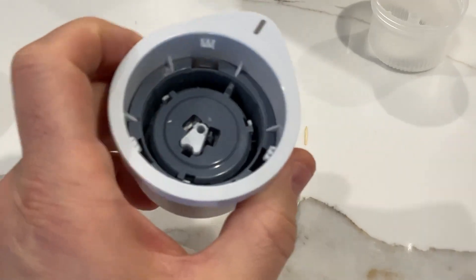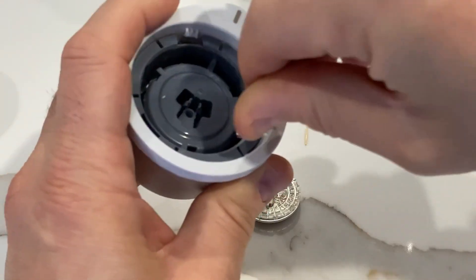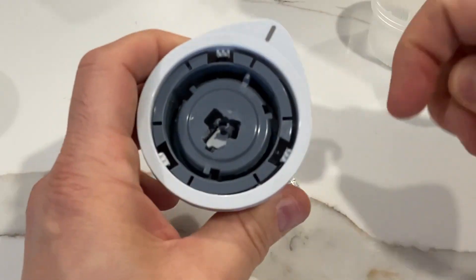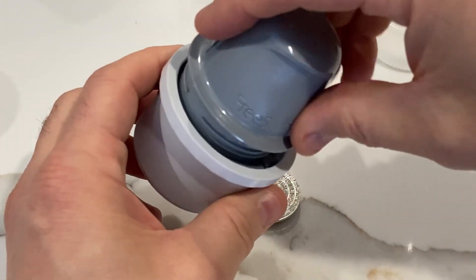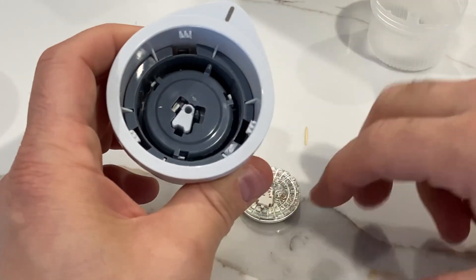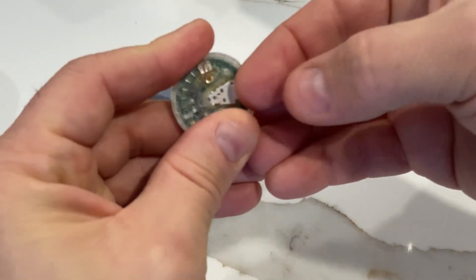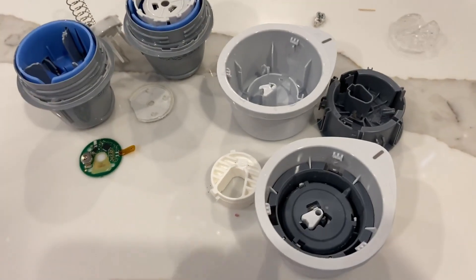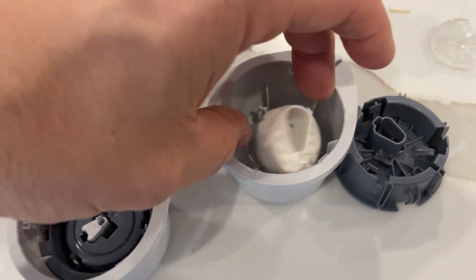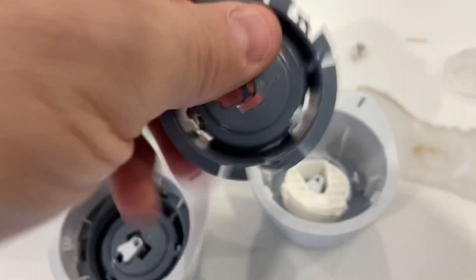So really this thing is just a one-time use device that picks up the needle — it's just for safety. There used to be little catches here, so I can bring it back up by just doing that. There's a thing there and the needle was housed inside there. When you apply this thing, you basically push that down and the needle component gets attached to this end. So that's this little guy here.